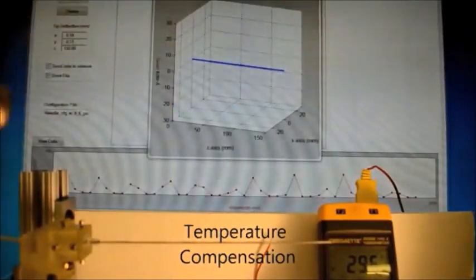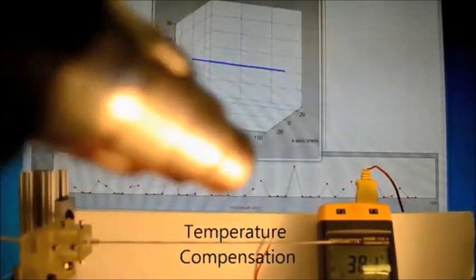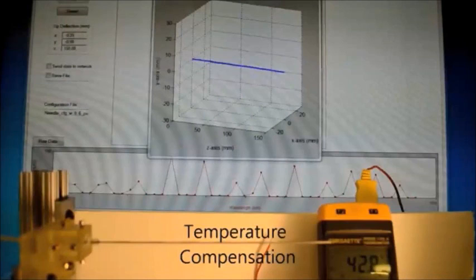The sensor configuration is compensated for temperature effects. A demonstration shows that as heat is applied, the needle still appears straight in the visualization based directly on the sensor measurements.